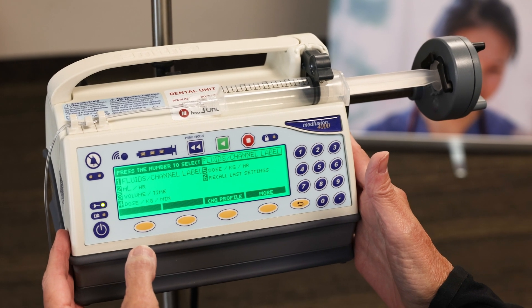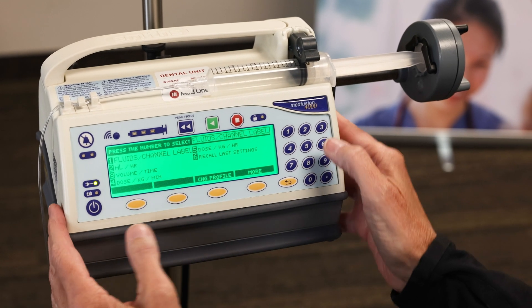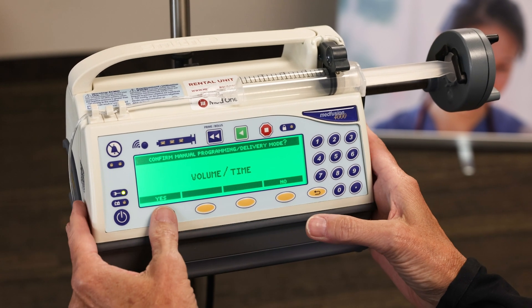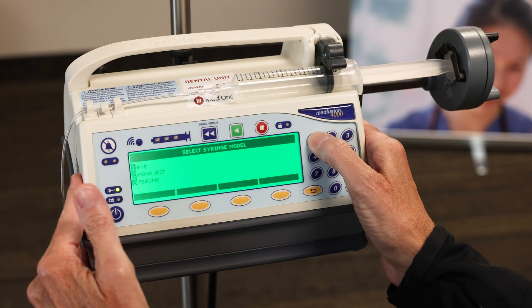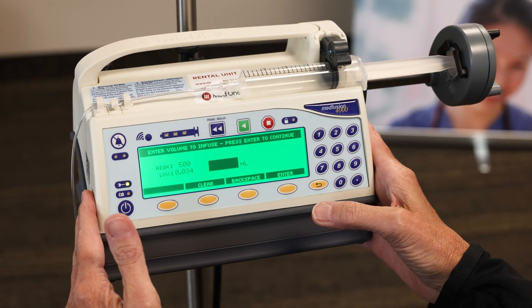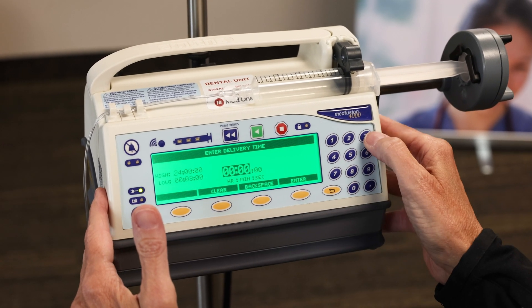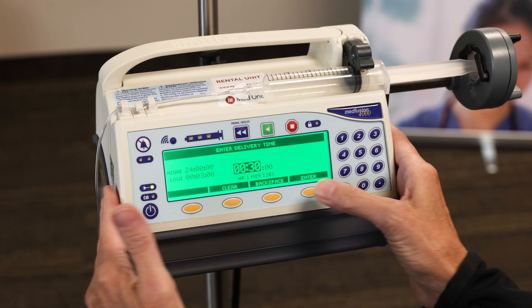I'm going to do a drug based on volume over time, so I'm going to choose number three. Again, this is just for demonstration purposes if you don't have this in the library. You have to confirm your brand of syringe and the size is 20. I do have 20 mLs and I'm going to give that over 30 minutes, just for demonstration purposes.